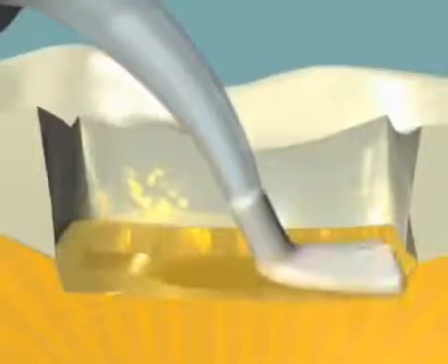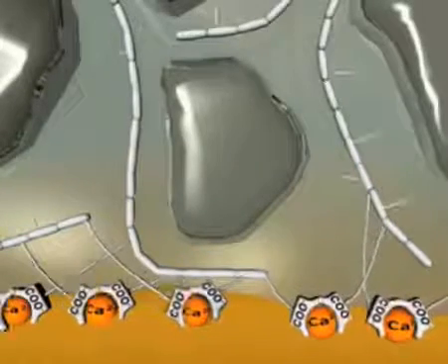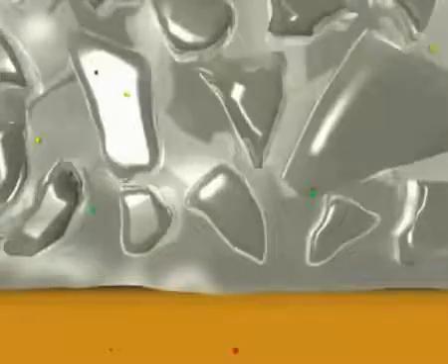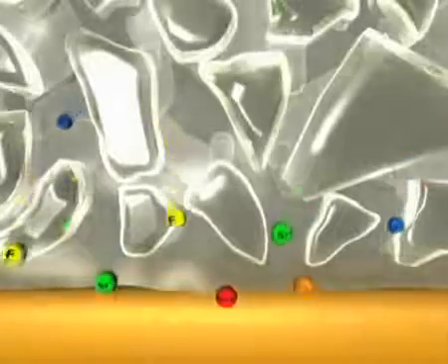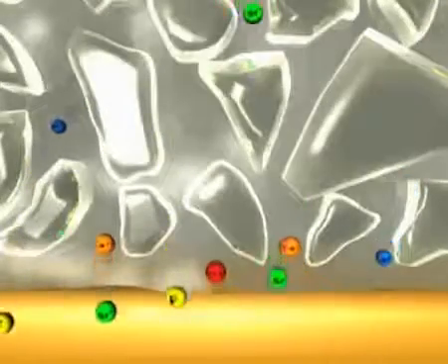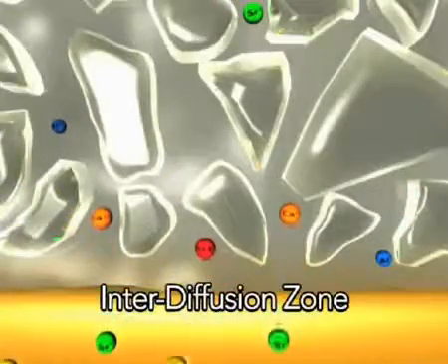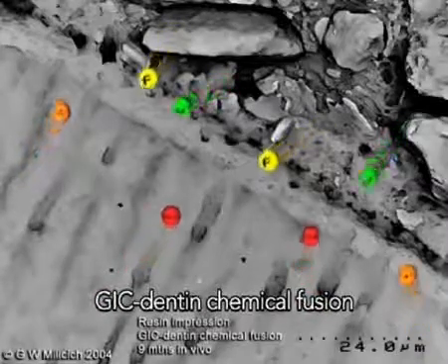It is essential that the glass ionomer is placed while it has a glossy surface. The gloss is free polyacid, which is able to penetrate the cavity surfaces to form a strong, hydrolytically stable chemical bond to calcium ions within the dentin and enamel. In addition to chemical adhesion to calcium in the tooth, a fusion bonding process takes place as well.